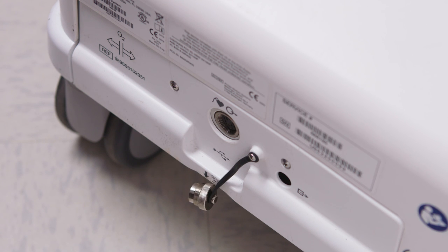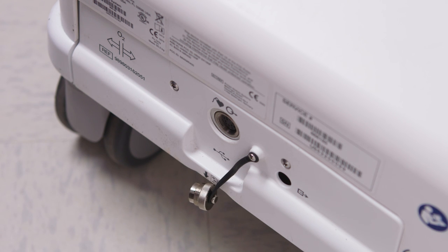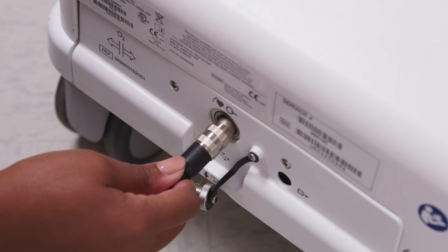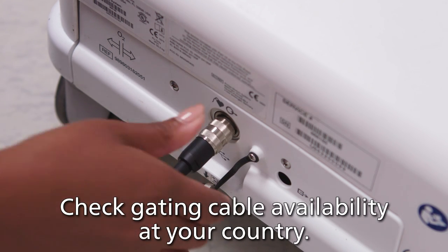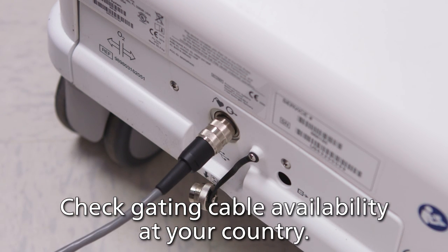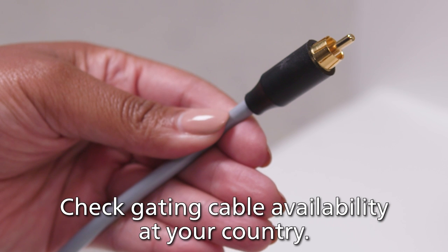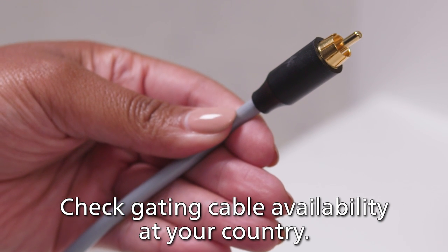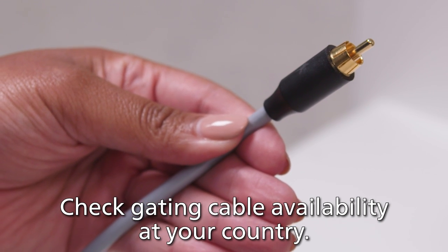For direct wired connection ECG gating, connect one end of the gating cable to the gating connector. The other end of the cable will connect to the external gating connection port on the MRI system.